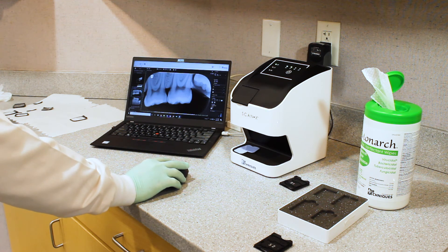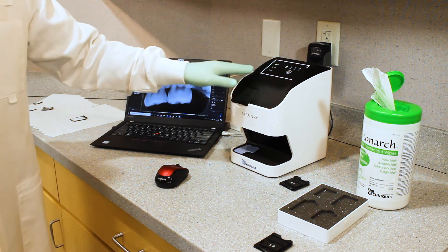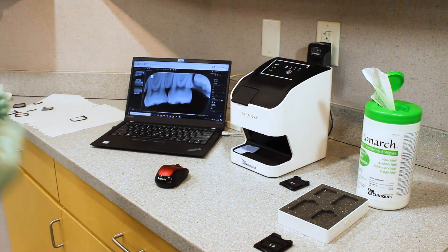I will then end the acquisition like we see over here. And the machine goes back into its ready state until we are ready to accept additional plates.